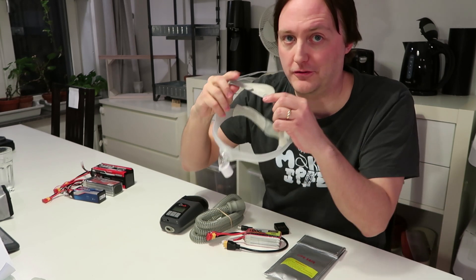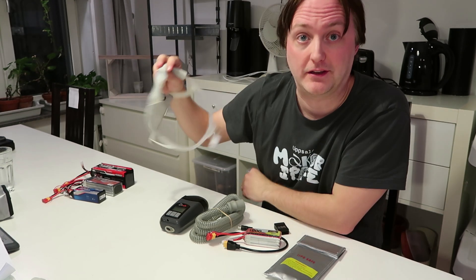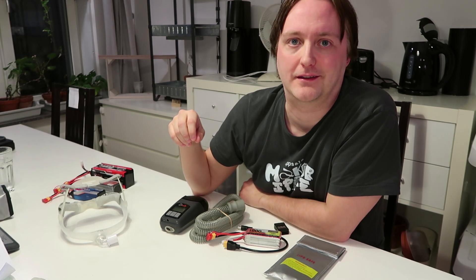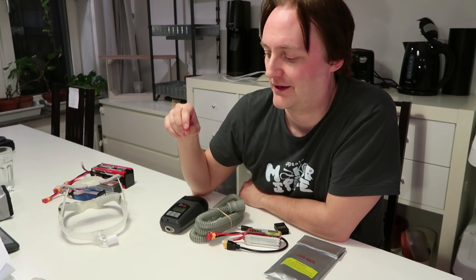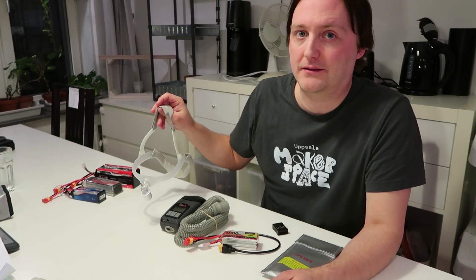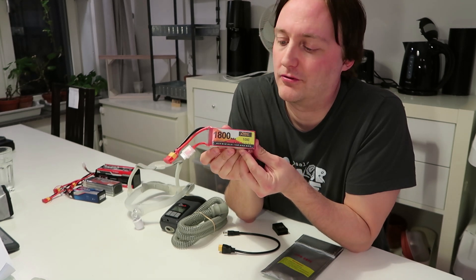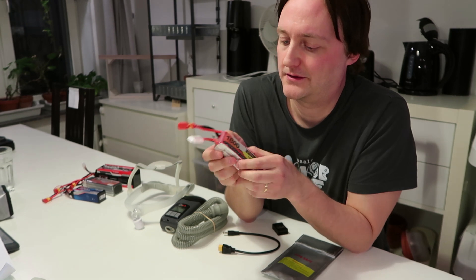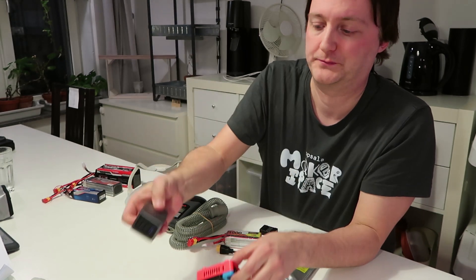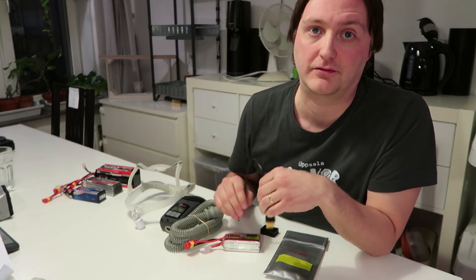Do you suffer from sleep apnea and are looking for a battery powered CPAP solution for hiking, camping or traveling in general? Then this video might be interesting for you. My name is Christopher. I got my sleep apnea diagnosis 7 years ago and I've been hiking for a few years. I will be showing you a really nice solution where you can use your normal mask and cheap LiPo batteries normally used for drones and radio control cars, which you can charge using a normal USB-C power delivery adapter. You won't need to custom make any cables — you can buy everything off the shelf.